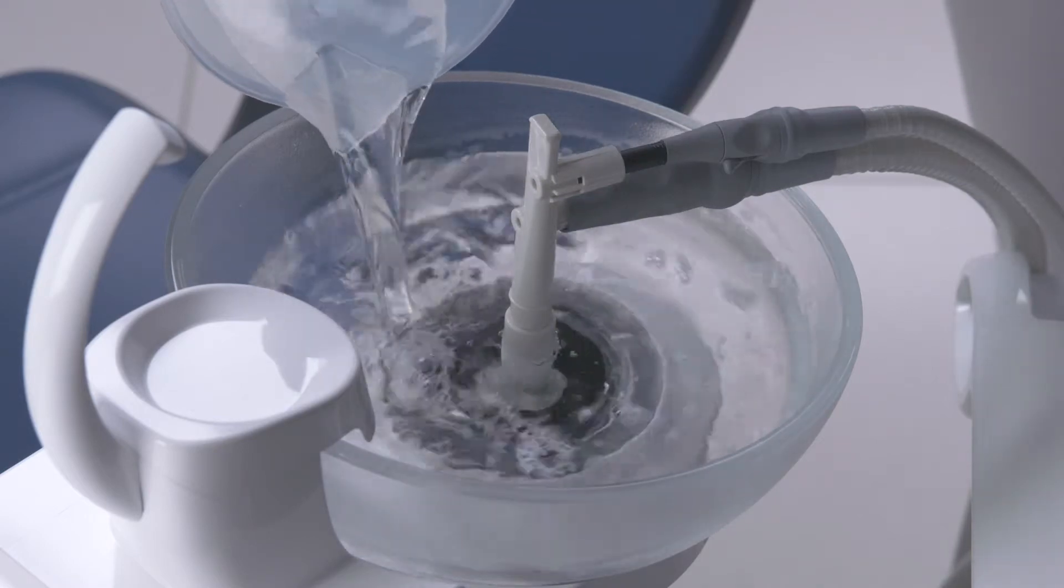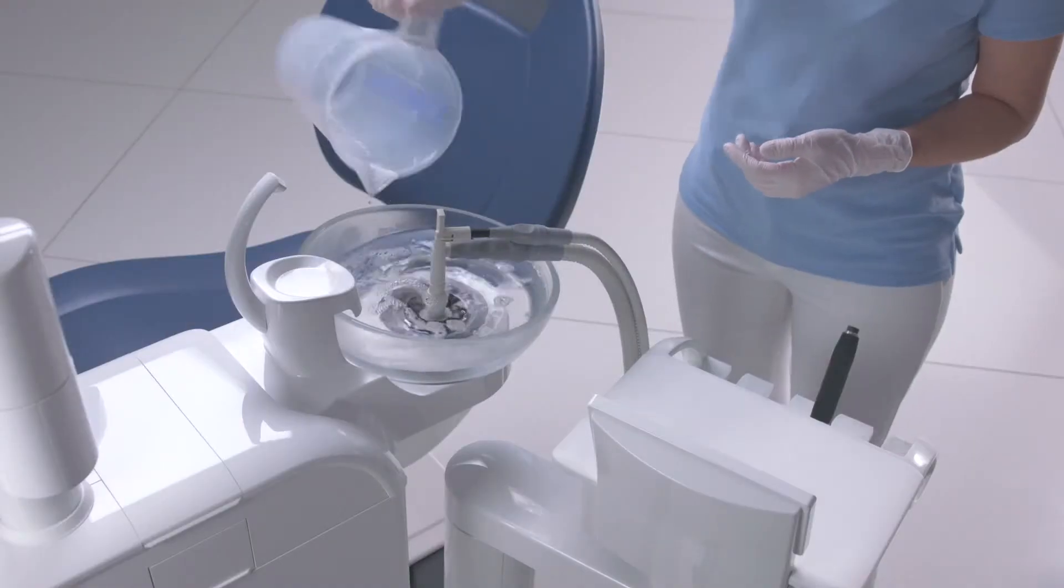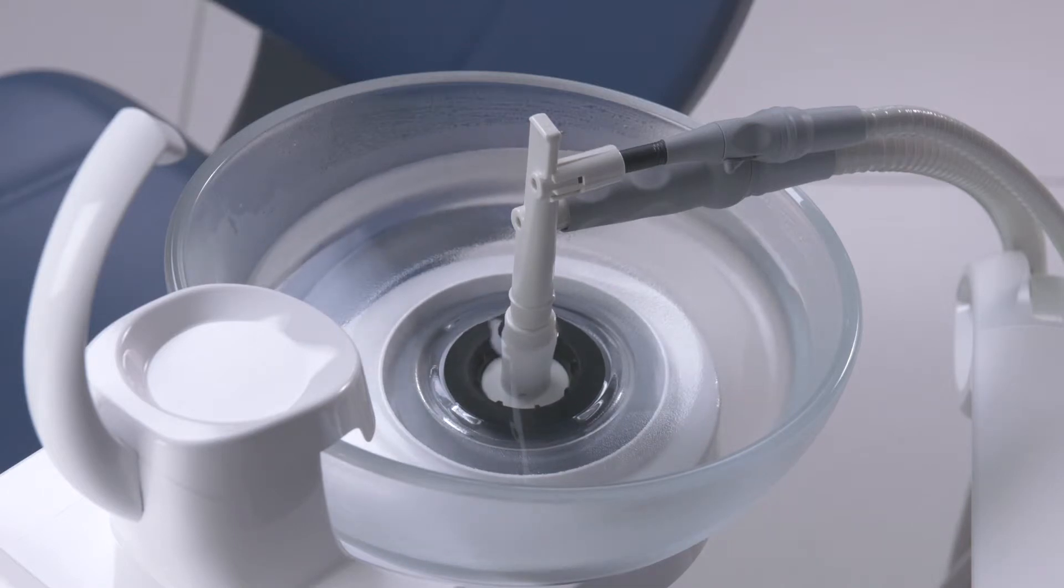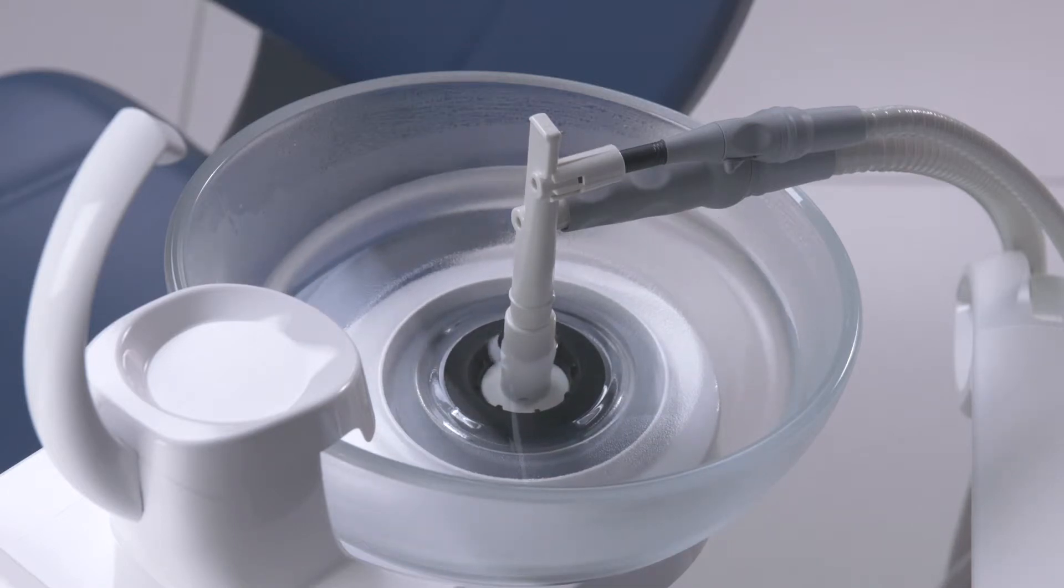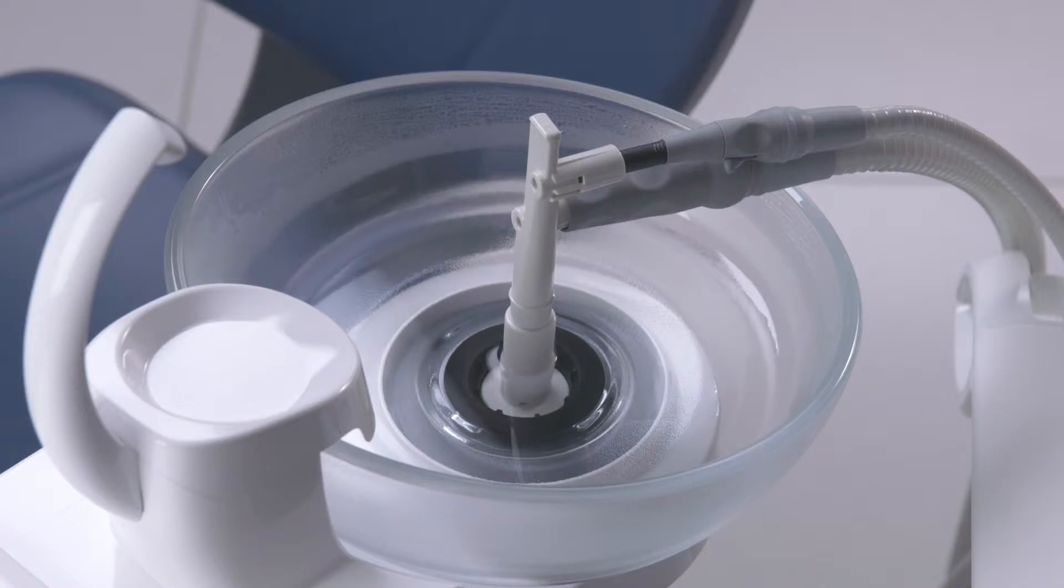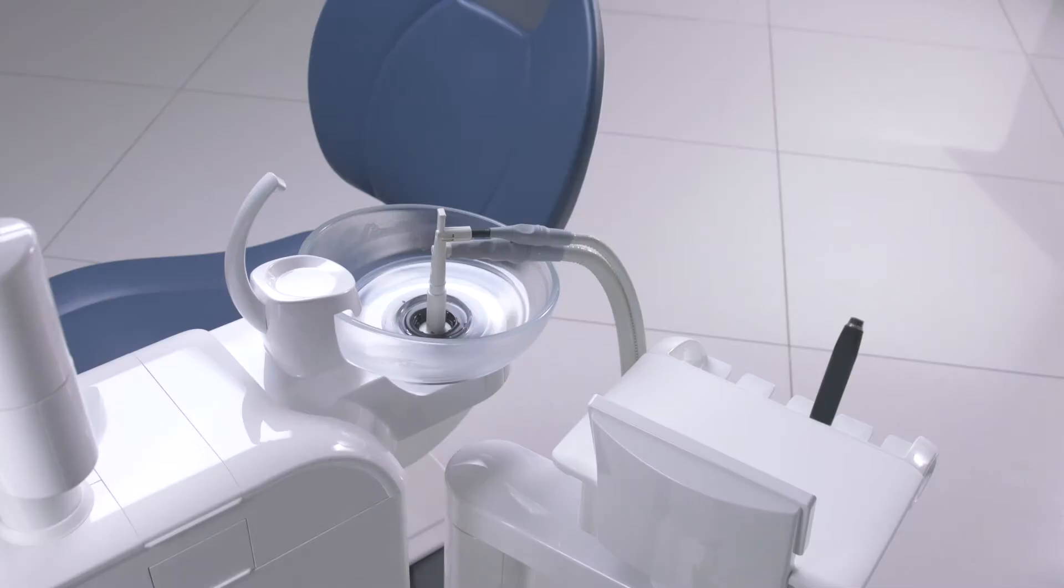Following the cleaning process, pour at least one liter of water into the cuspidor. The water is drained, thus preventing any cleaning agent residues from remaining in the suction hoses.